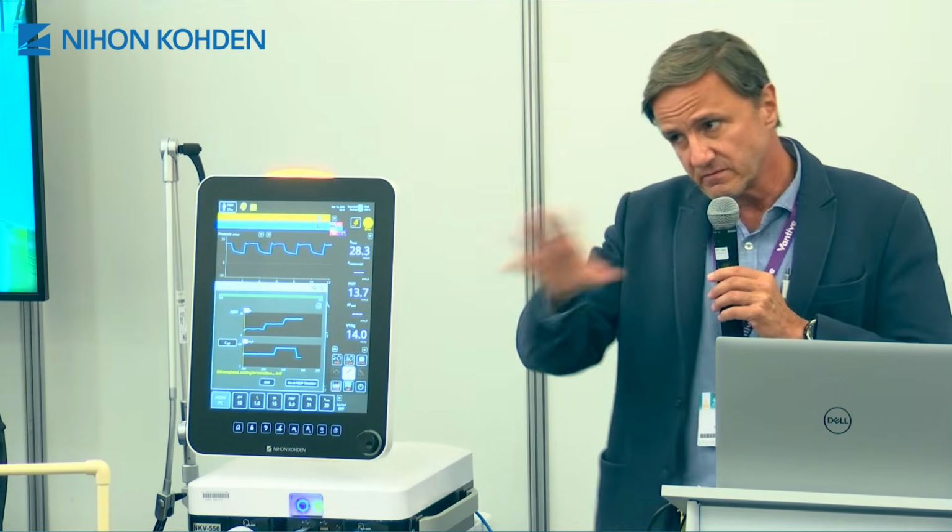So you have to do the maneuver with your eyes on the blood pressure and cardiac rate. And ideally, if you have any pulse contour technology, that could also be very nice. Saturation is well known to be a poor signal, so don't pay attention to saturation. It's well proven that saturation can go in the reverse direction during the recruitment maneuver and doesn't mean a bad thing. It could just be a temporary mismatch of ventilation and perfusion.